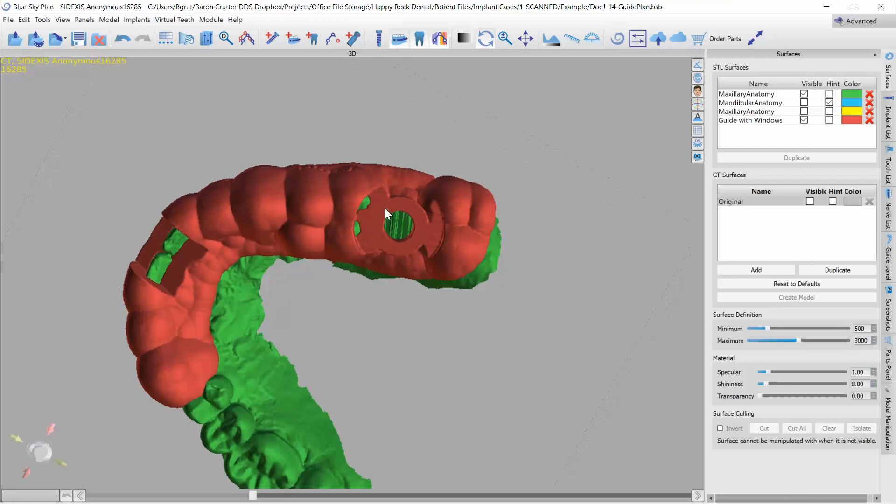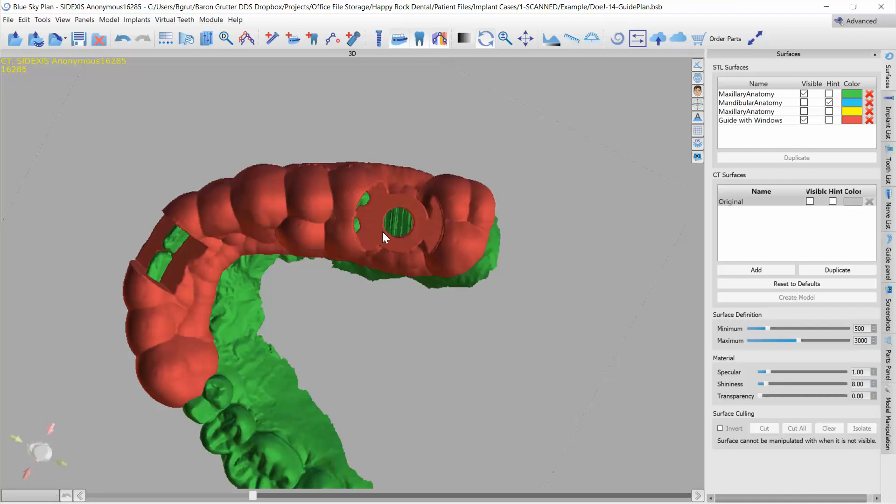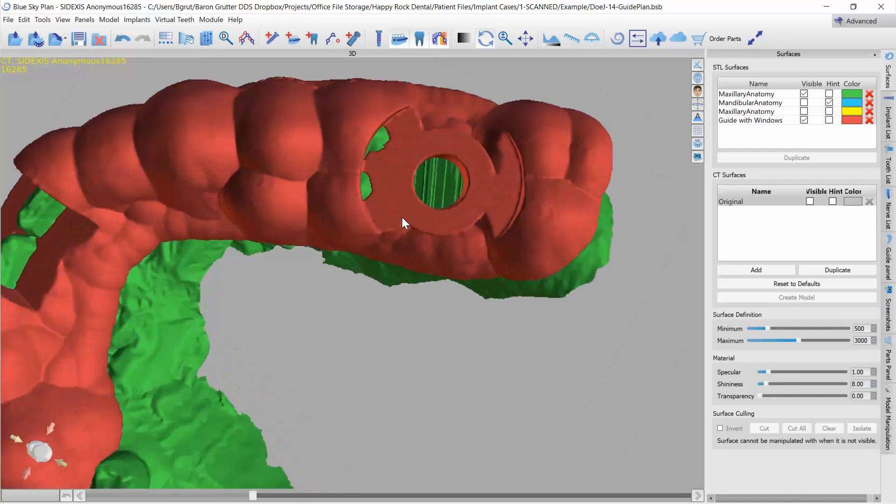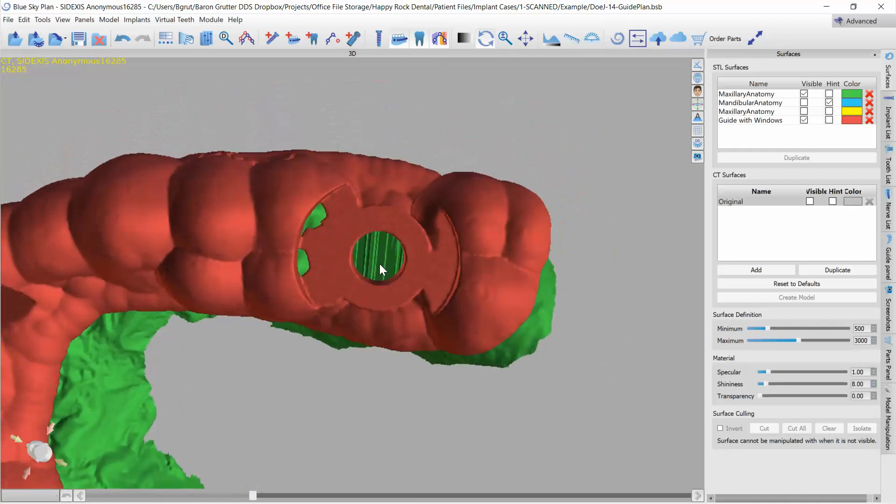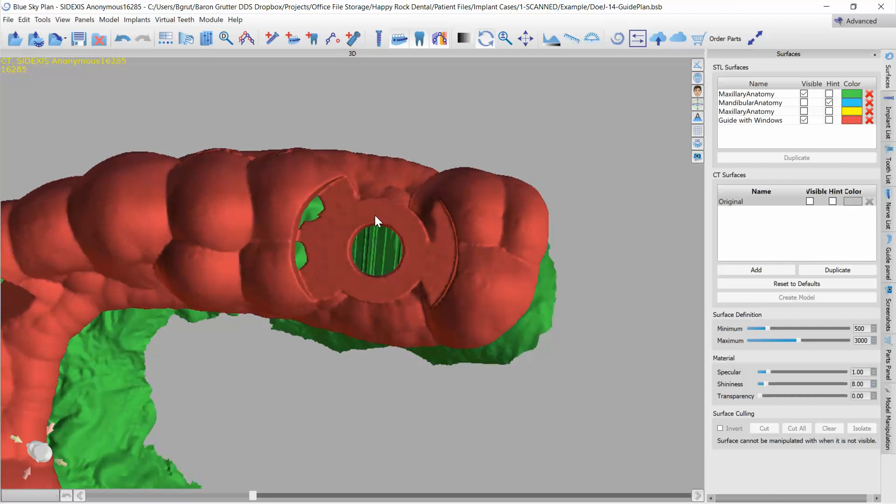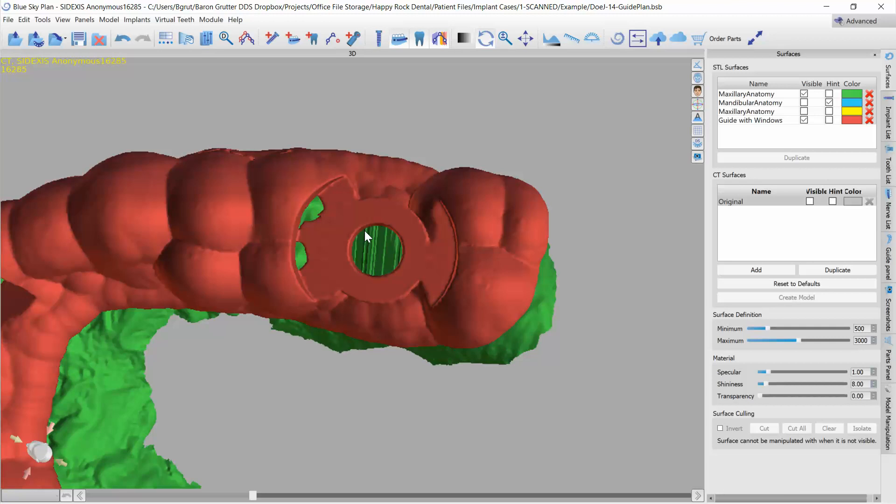Now one little heads up: if you're using a metal sleeve that is cemented in the guide, it's a little bit harder because even if we make this guide with a cutout here, we still have a metal sleeve that gets in the way so you may have to grind that. If that's the case, you want to use a thick metal tube because the thinner it is, the more likely it is to bend and collapse.